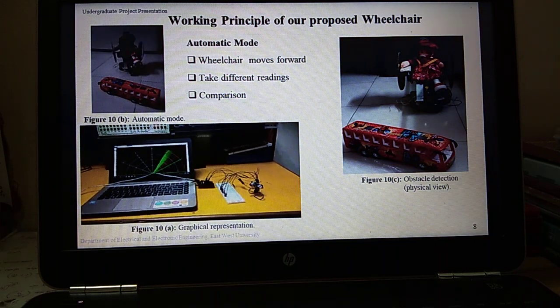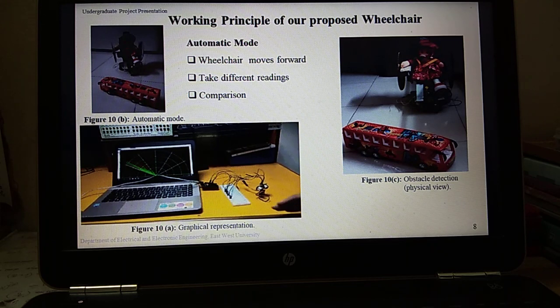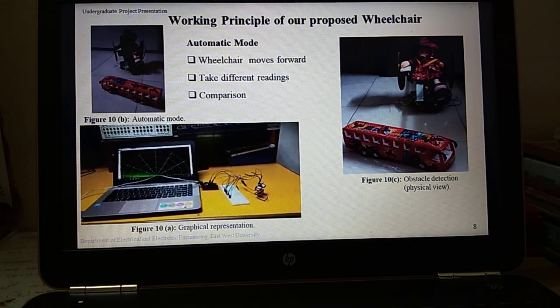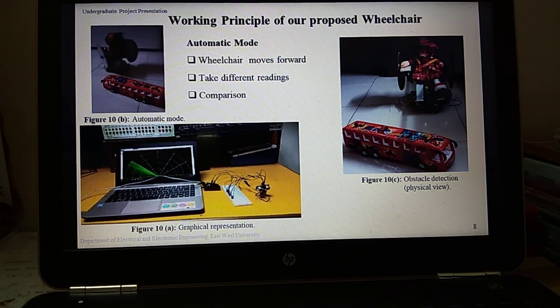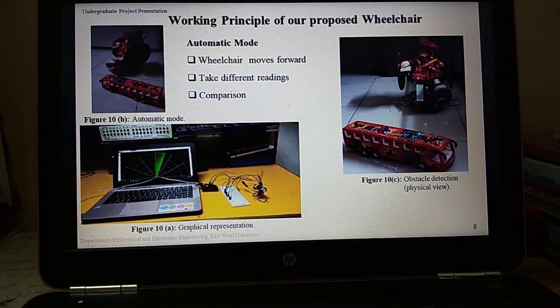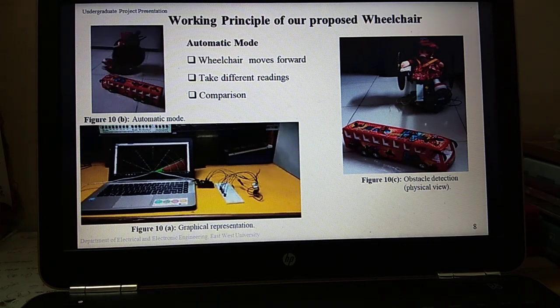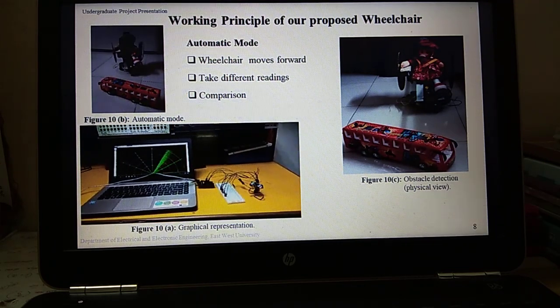Similarly in this prototype, the ultrasonic sensor is mounted on the servo motor and both of them are further connected to the Arduino board. The ultrasonic sensor uses the reflection principle for its working. Servo motor has a signal line which is connected to the pin line of Arduino board. The rotation of the servo is done by generating pulse width modulation signal on its signal line.